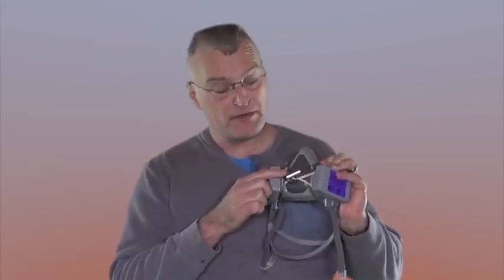So now that I've got the microphone on there nice and securely, I'm going to put the whole thing on and then put a surgical mask over it which will cover the microphone and the exhaust port.